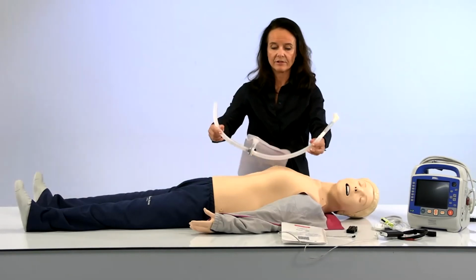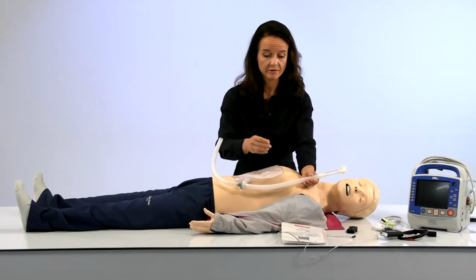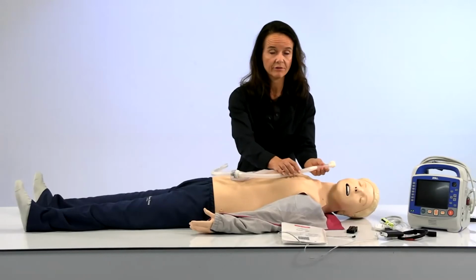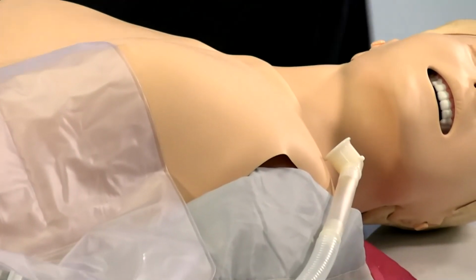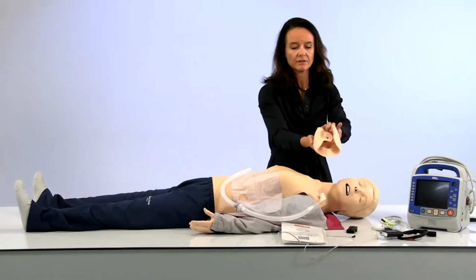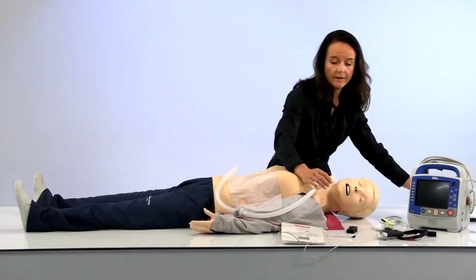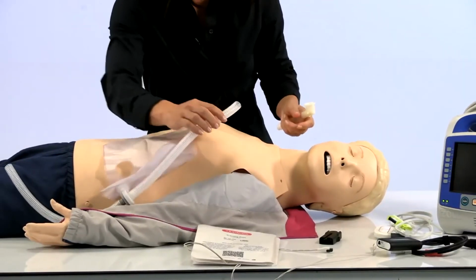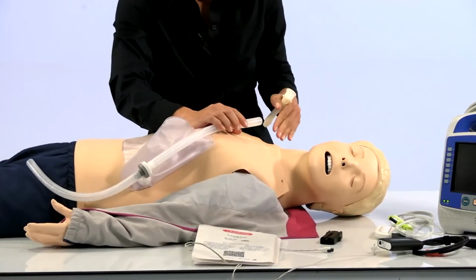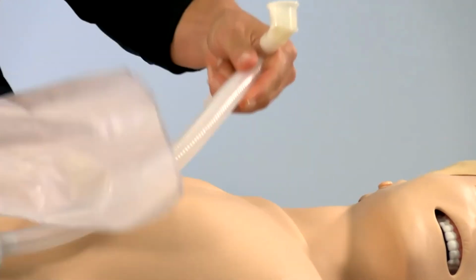So basically for a standard head and airway head, the lung is the same. It's just for the standard head, you have this mouthpiece that goes all the way to the valve in this face mask, this valve. It's attached here. So from the airway head, you just remove this and then you plug it into the trachea itself. So the lung is actually the same.